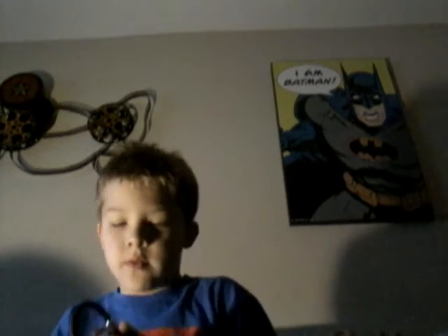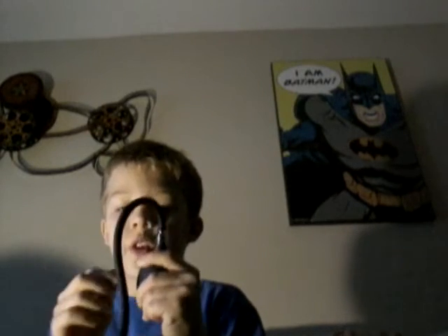I'm gonna tell you how to work it — no one's gonna probably volunteer to help. So you hold the thing like this. You turn the thing all the way up. Then when it gets too tight, you turn it all the way down. But if it's not too tight, I only want you to go up. If you're pediatric, I only want you to go up to one hundred twenty.